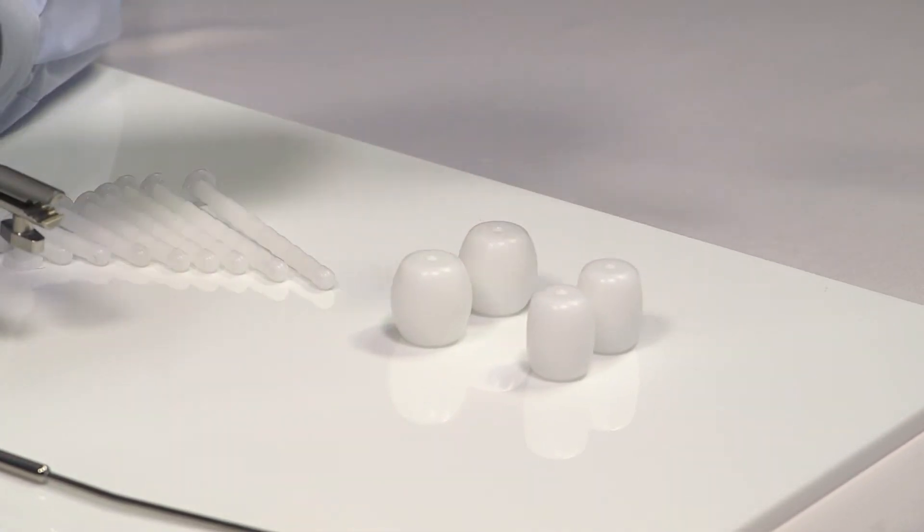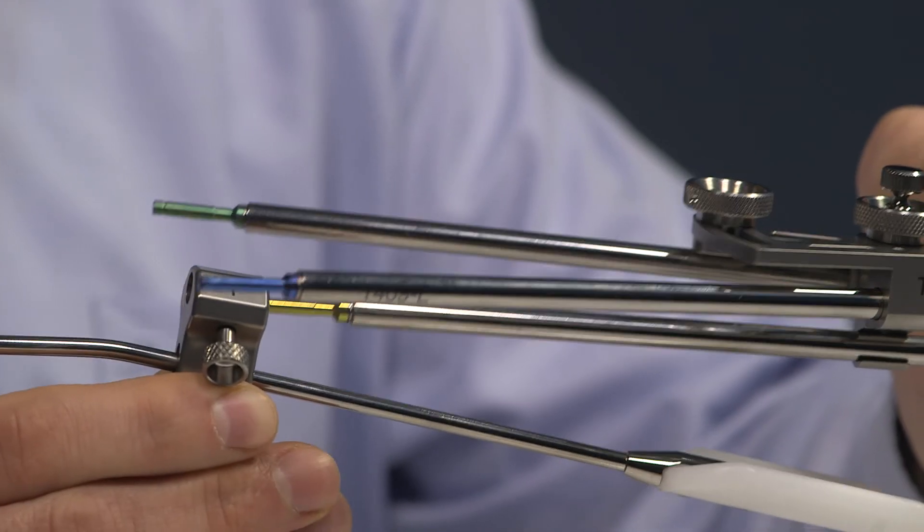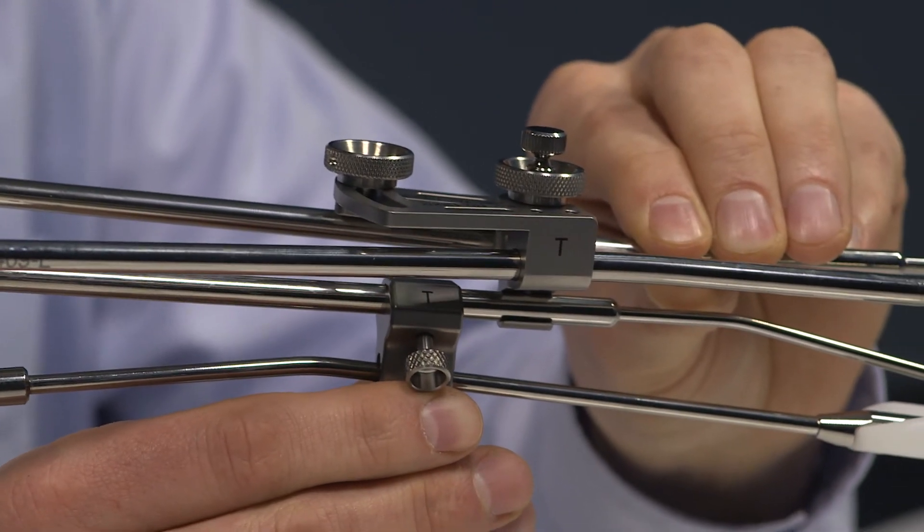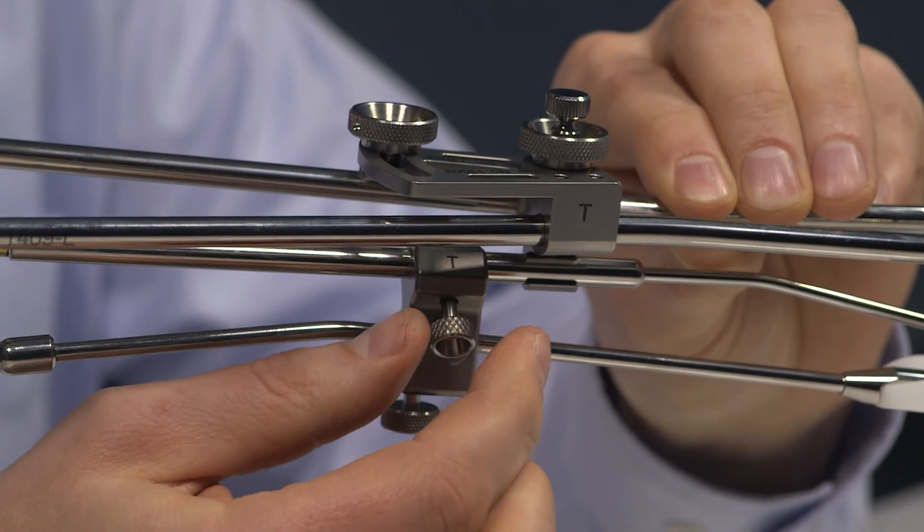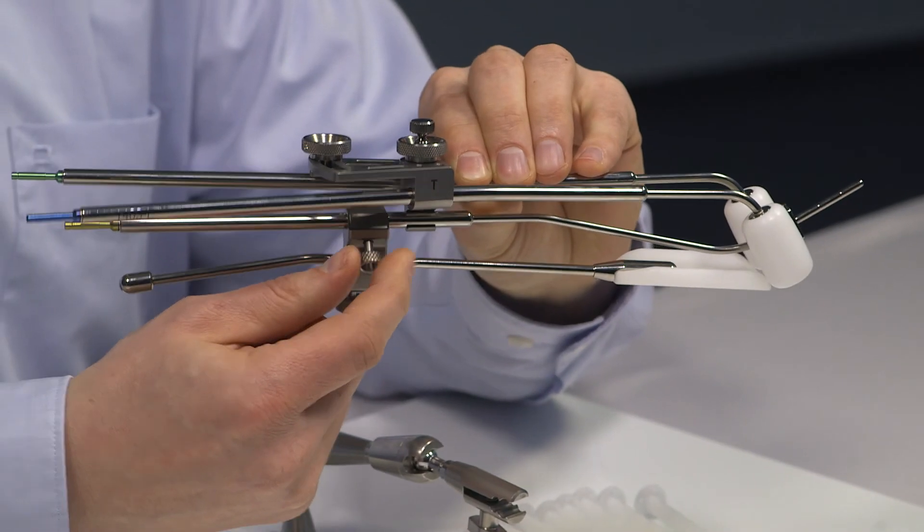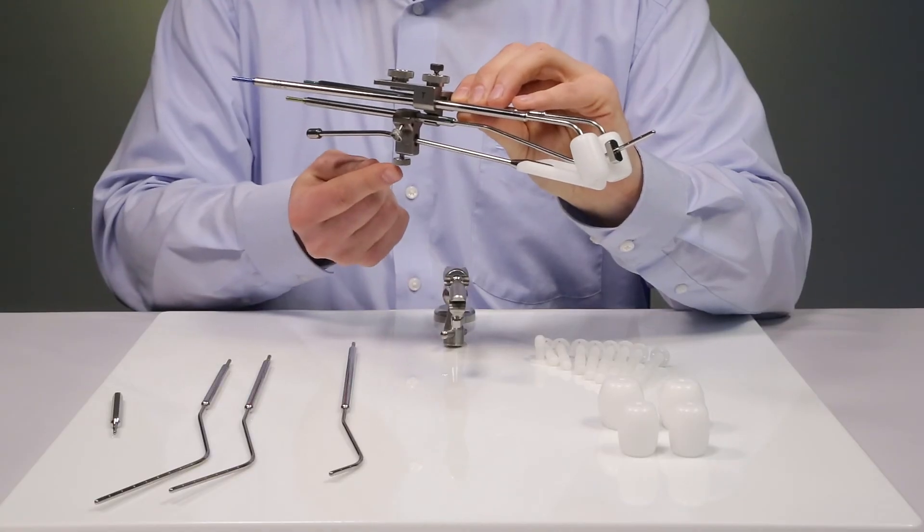Once the desired angle is defined, it can be fixed with a third screw. The angle can be adjusted with a lower screw.